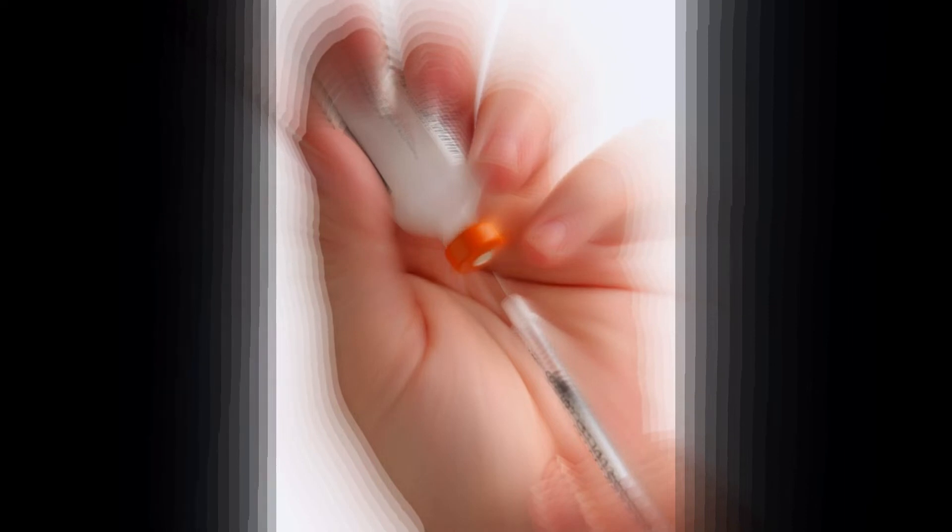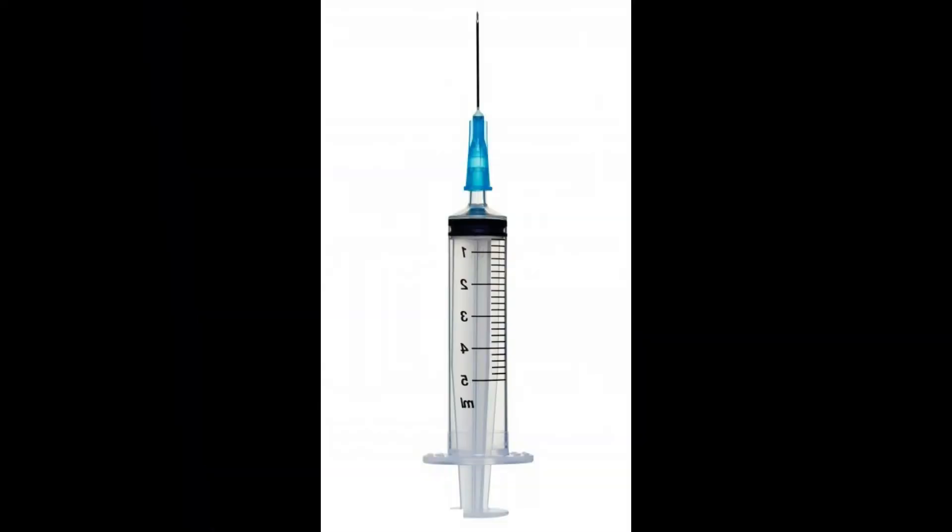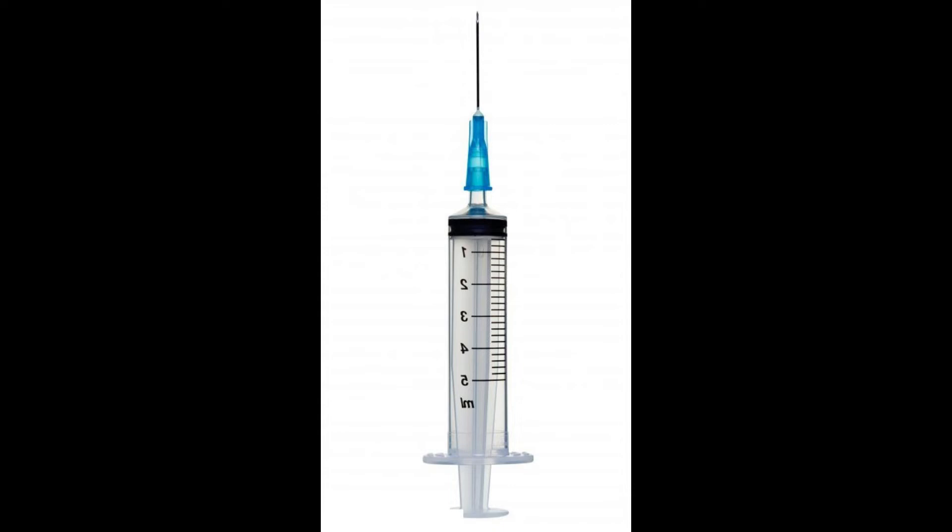Insulin syringes, for example, are found in three common sizes: 1 cc, 1/2 cc, and 3/10 cc. The correct size syringe to use is determined by the average size of the dose of insulin that the patient administers. An insulin syringe can also be categorized by how many units of insulin it is designed to hold. Each ml or cc contains 100 units of insulin, so a 3/10 cc syringe will hold up to 30 units, and a 1 cc syringe will hold up to 100 units.